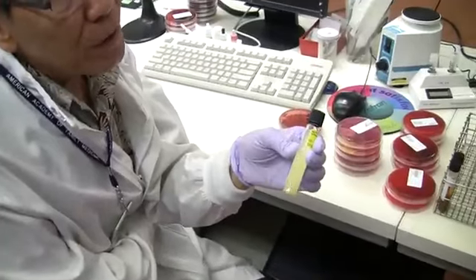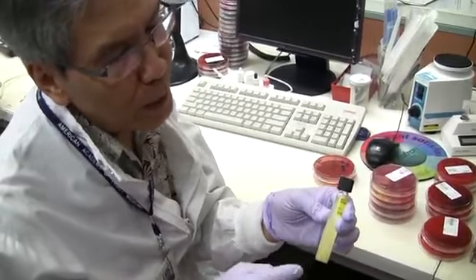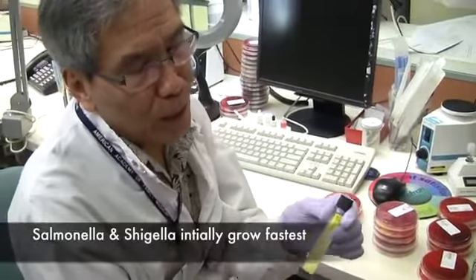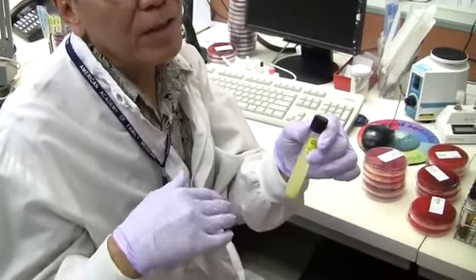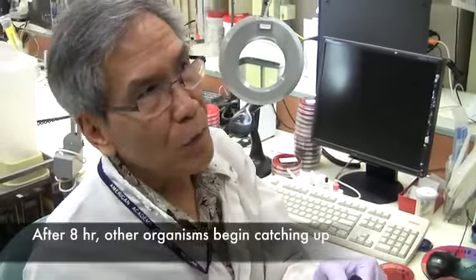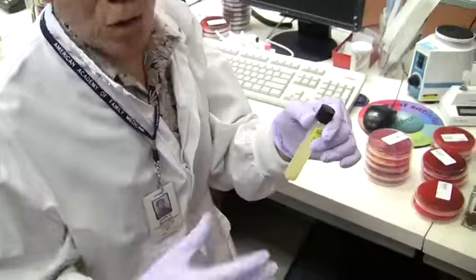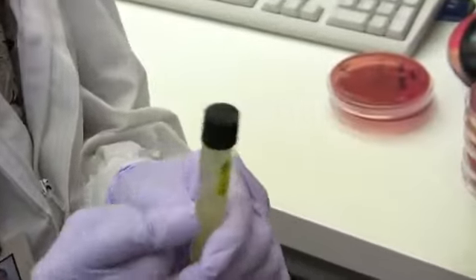Then we subculture this, because if there are some Salmonella or Shigella in here, they overgrow the rest of the Enterobacteriaceae after 8 hours maximum, and after that the Salmonella and Shigella will be overgrown by the ordinary Enterobacteriaceae. Gram-positive organisms will not grow in the GN broth.